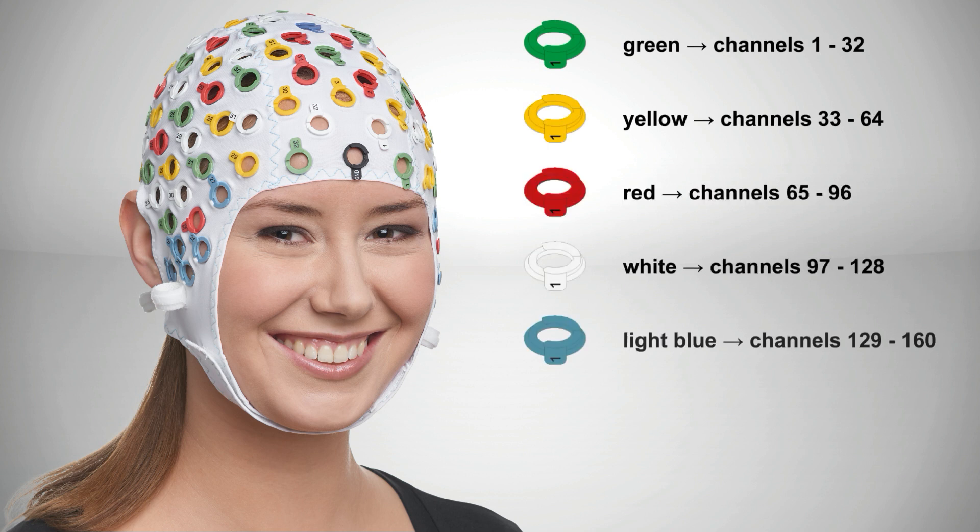For every stand-alone 32-channel bundle of ActiCap slim electrodes in use, an ActiCap snap cap will have a dedicated color-coded and numbered group of 32 holders.